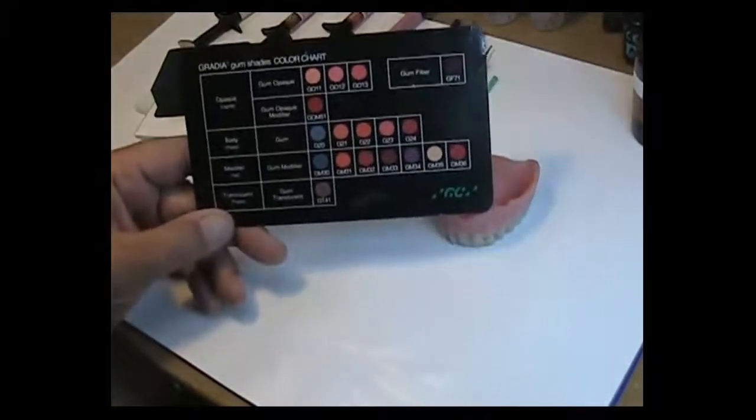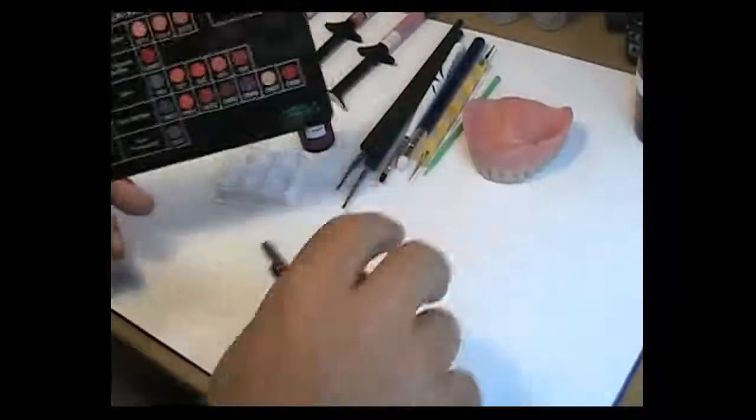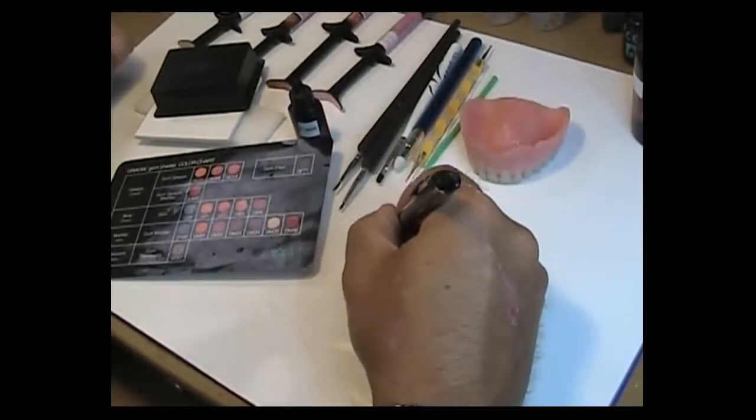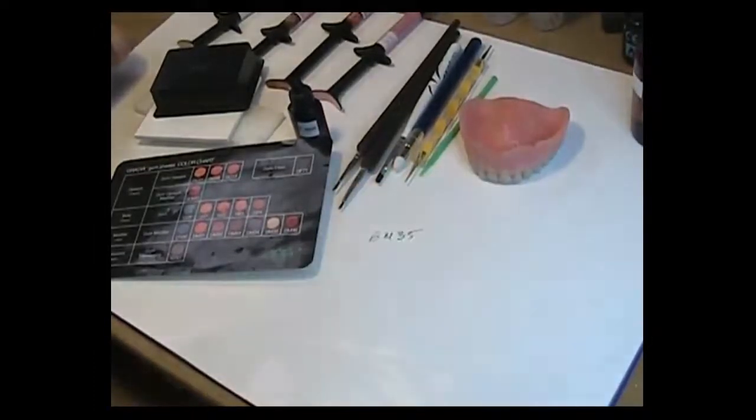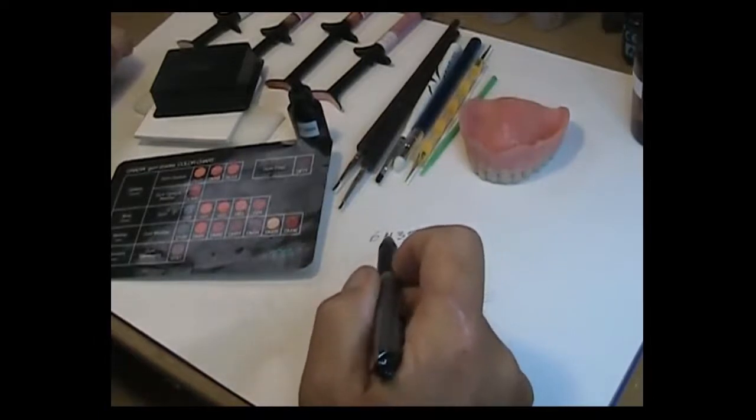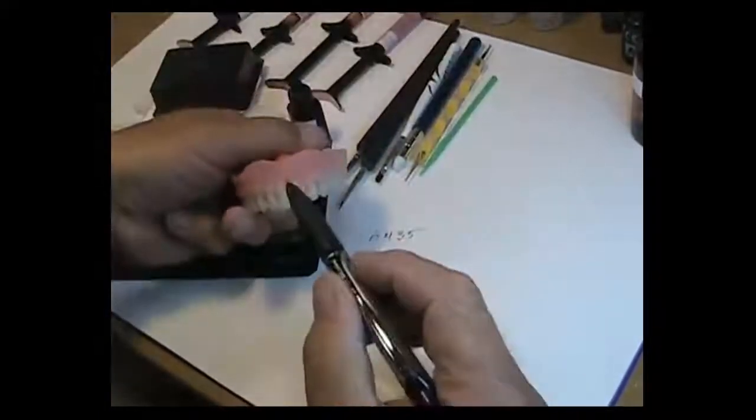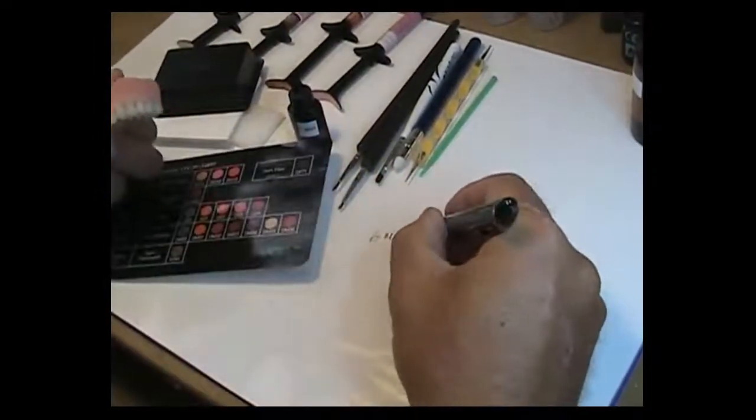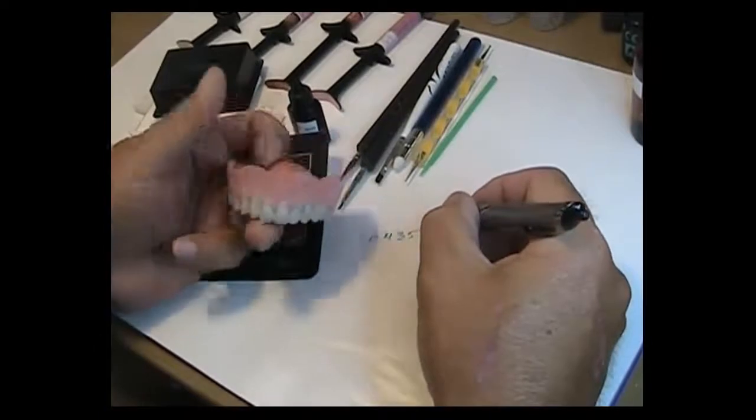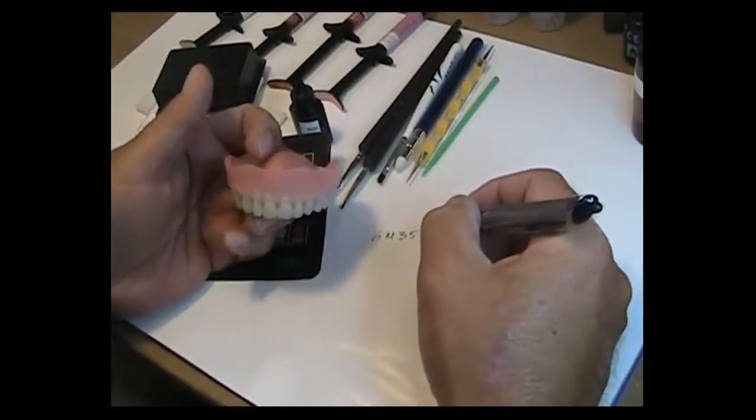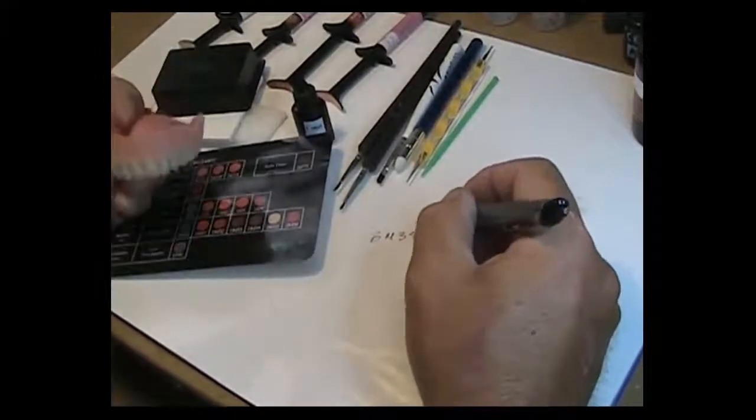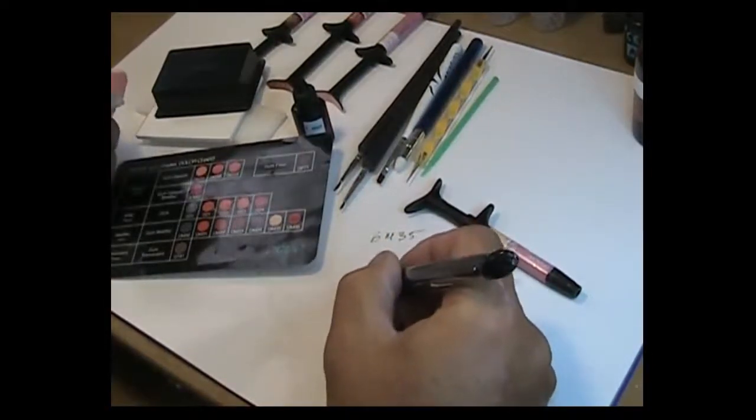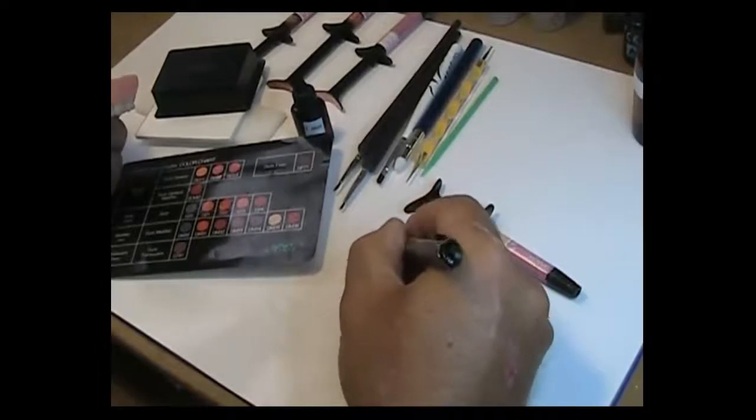Namely the GM 35. The GM 35 is your blanche effect that you get in your denture base along the necks. It's a light color. It's intense. You have to be careful the way you use it because you don't want to have a bunch of white necks. But GM 35 is one that I would recommend. So that's 35.